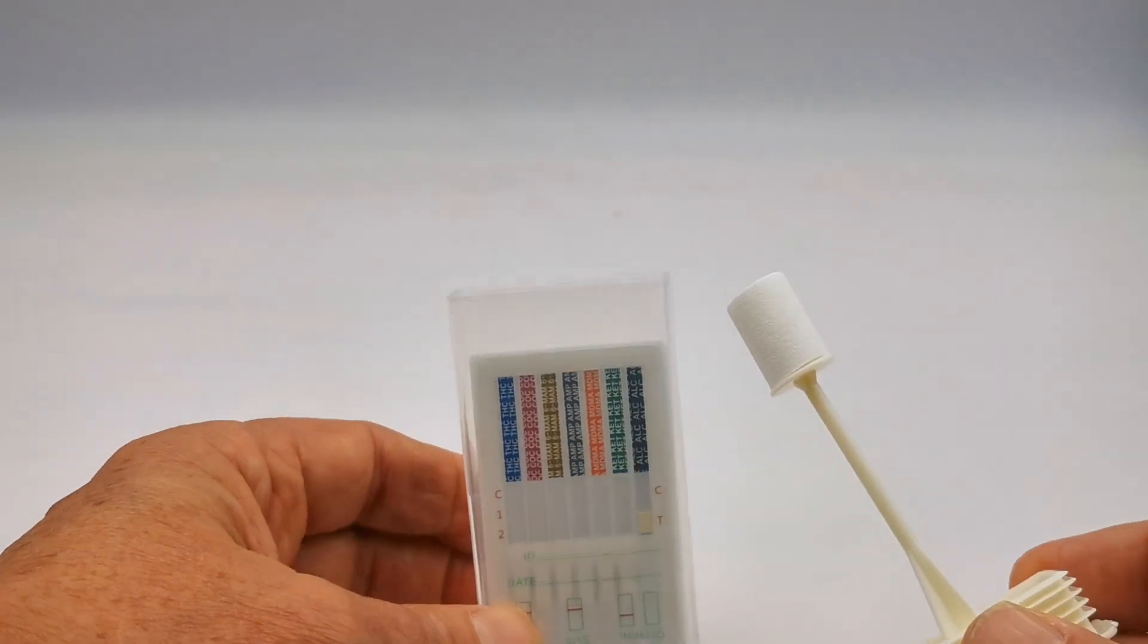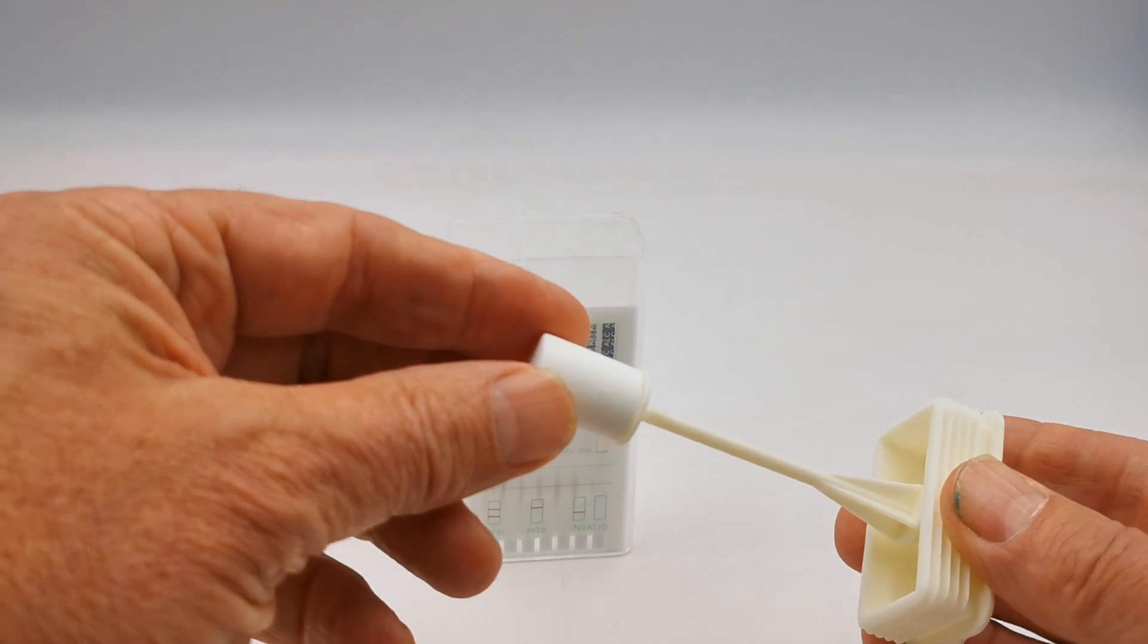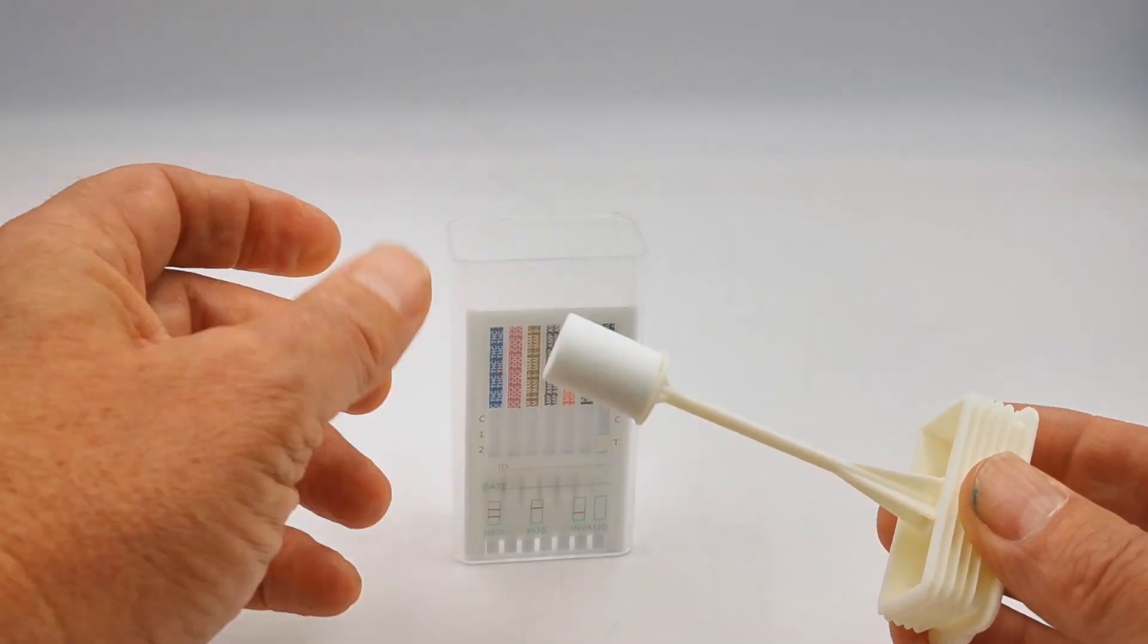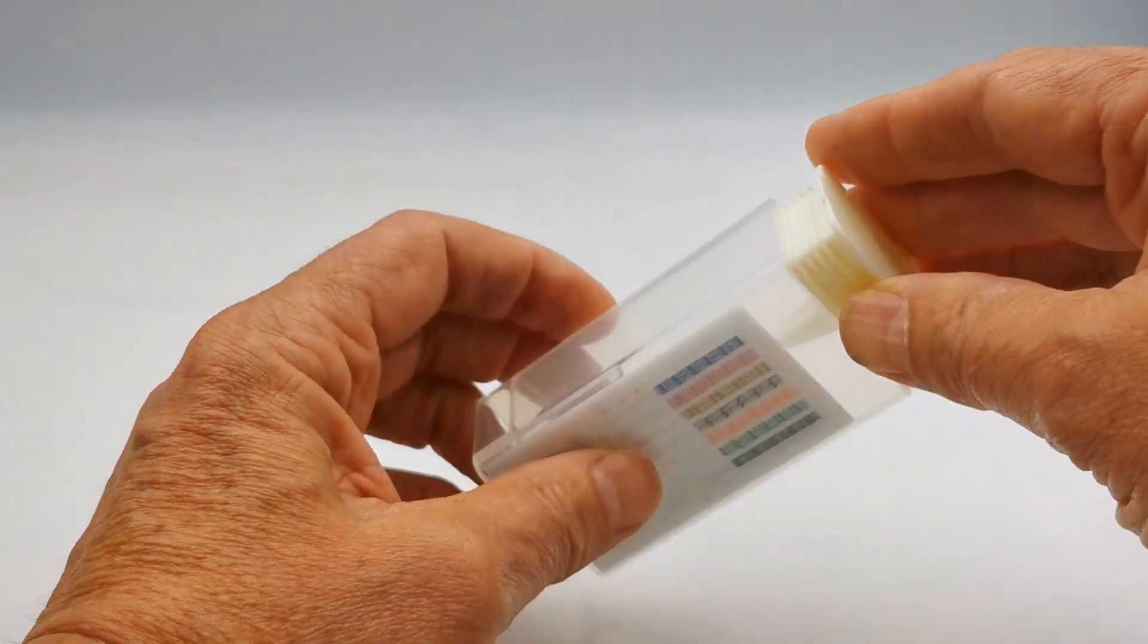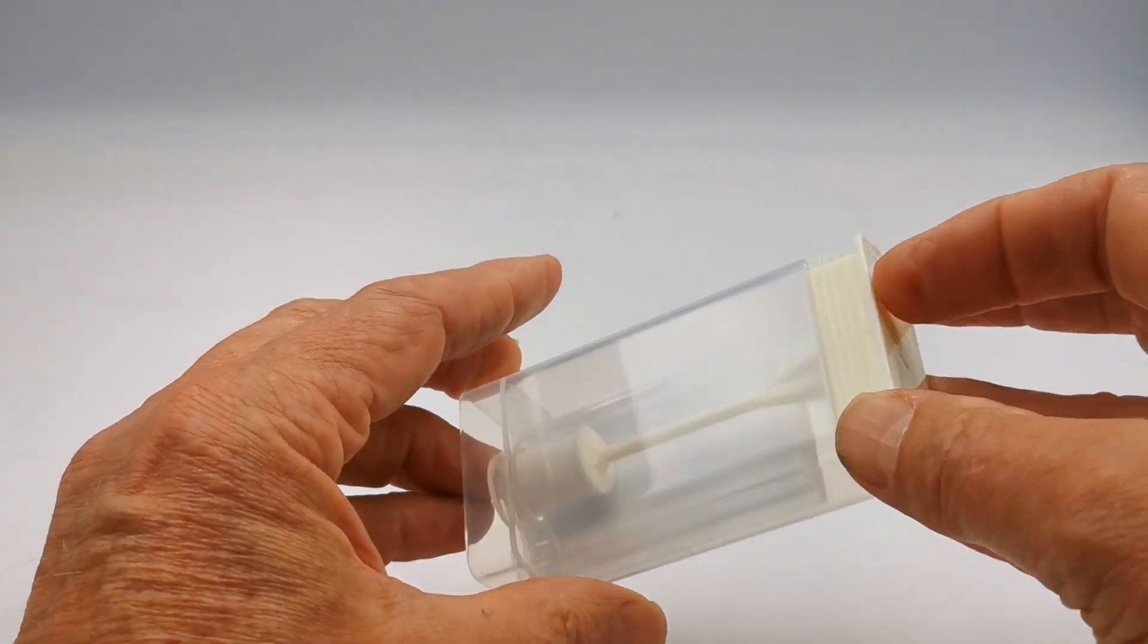So the swab cube is a firm collector on a stalk. Very rigid, and it's impossible to discharge that or fit these two together while it's dry.